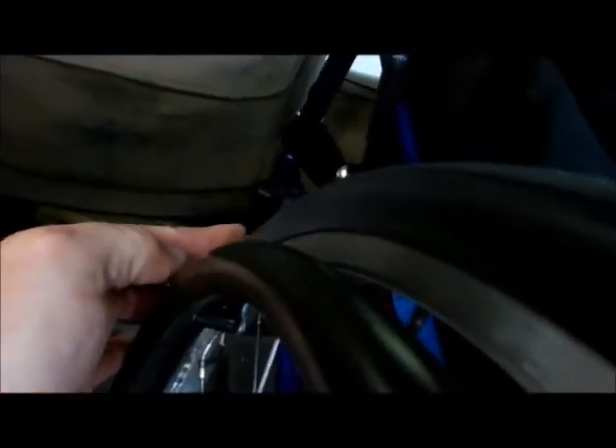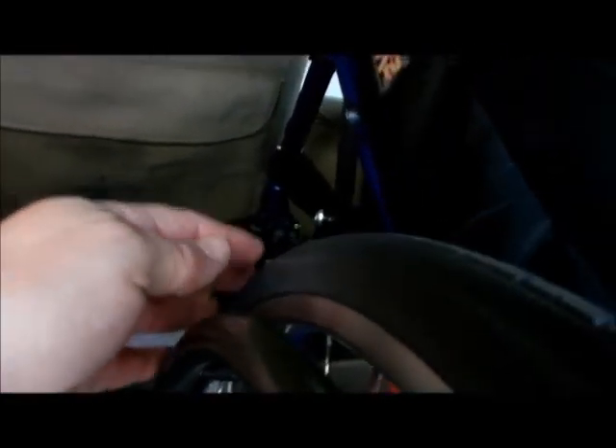But what I need to do now is where the brake is up here — it does hit about right here, but it doesn't get them all the way across, so I need to bring it outside. I just came out of a local hardware store and I picked up the spacers for 33 cents apiece — not bad. But take a look, this is what I noticed: with the wheels out that far, look what it's doing to the lock. It's kind of torquing out some, and I'm really afraid that after time, that's going to bust.